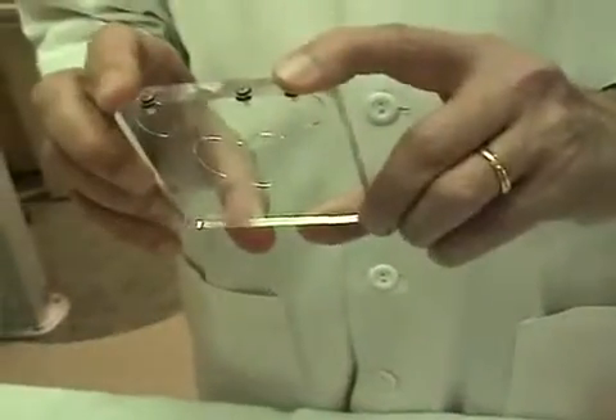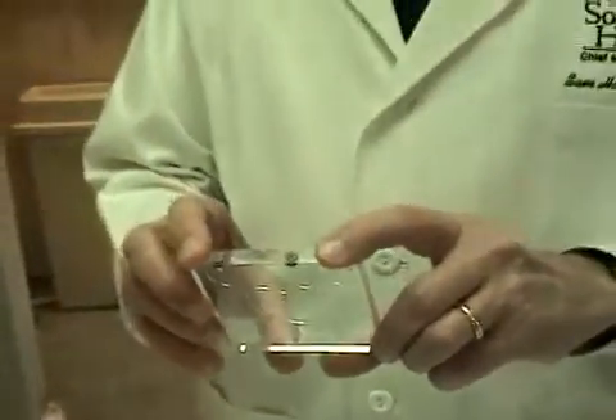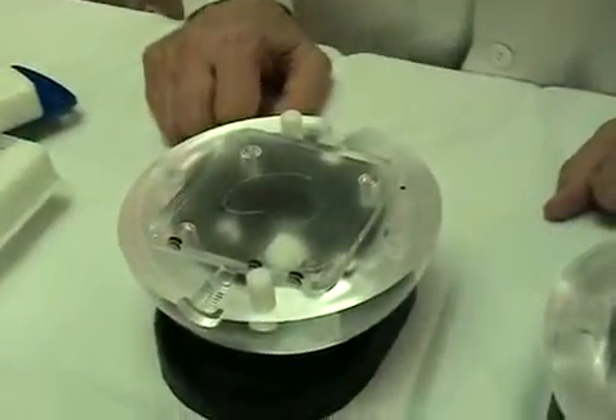You need a target volume insert. This is the MRI isocentric volume insert that has three cavities filled with mineral oil. This is called the MRI volume insert, but it's also useful for the CT. And this goes on this side of the phantom.